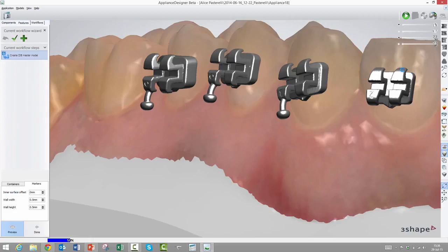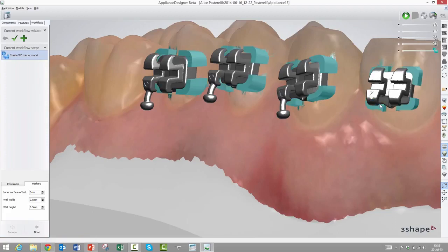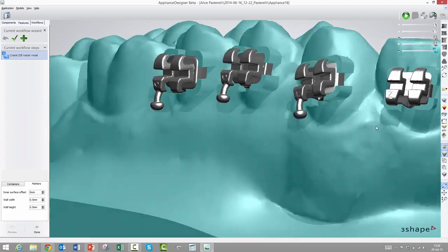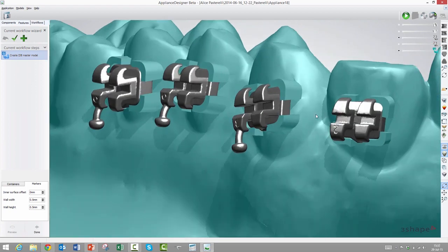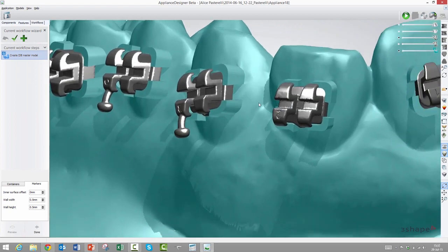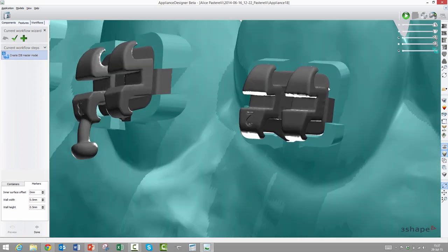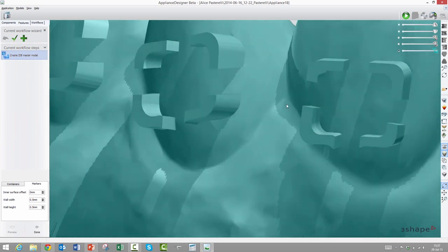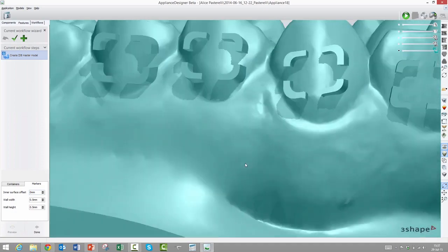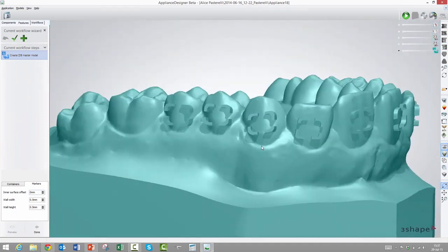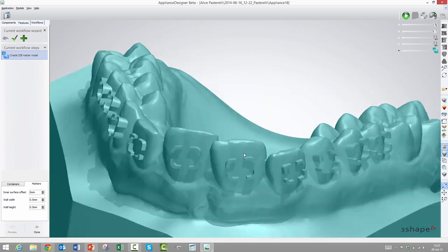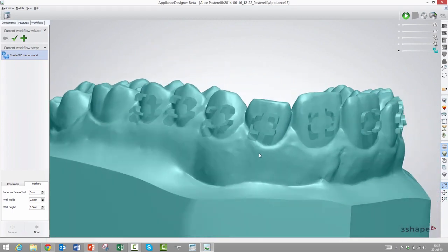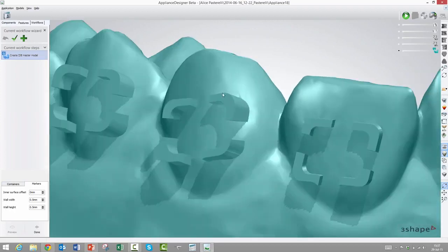The first parameter is called inner surface offset, and what that does is it on purpose either makes the footprint of the bracket too big or too small. So if we have some friction issues or other things, then we could circumvent them by making this wall too big or too small. So in essence, it's how too big or too small depending if you make this a plus or minus value.